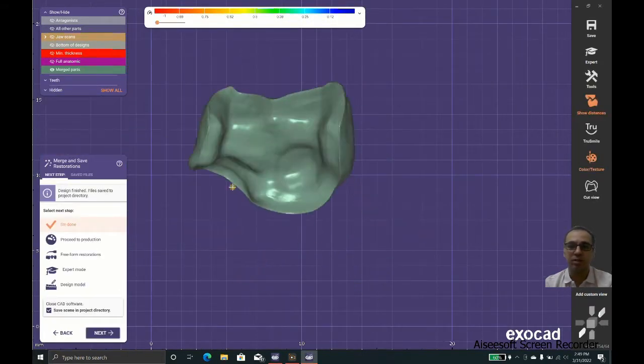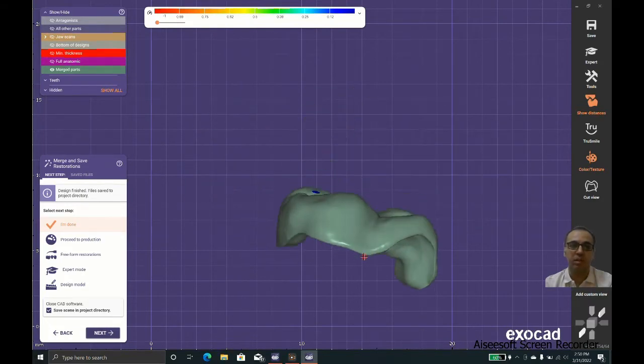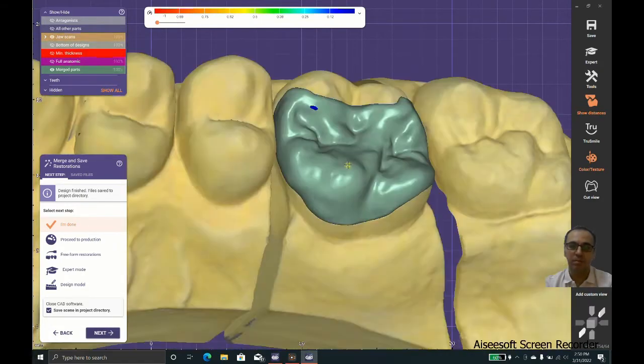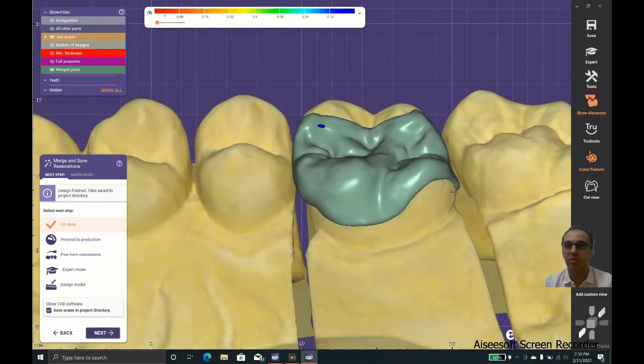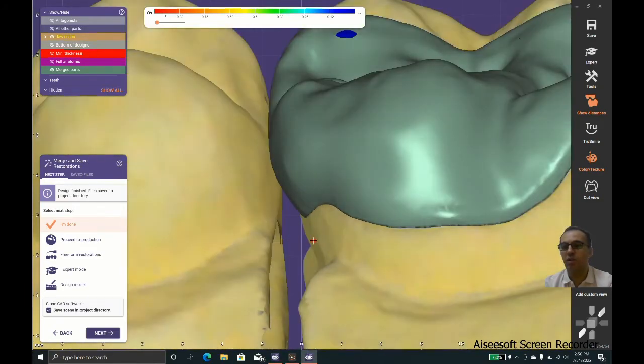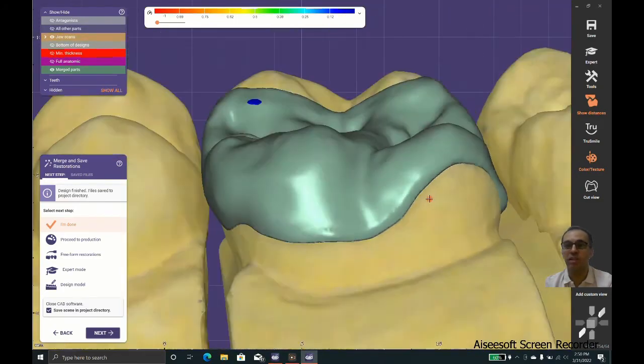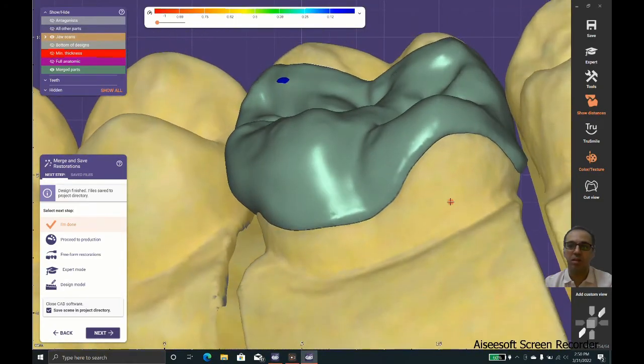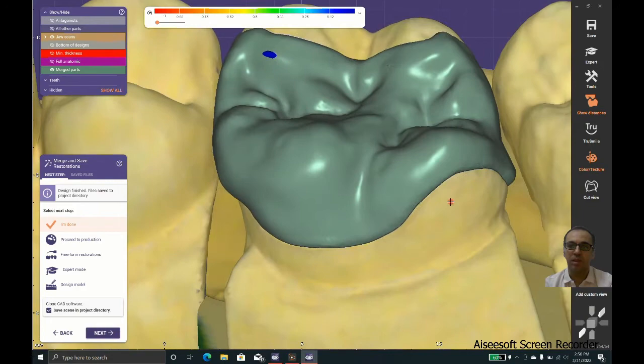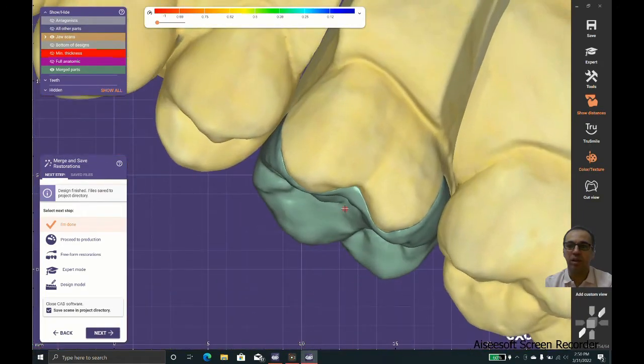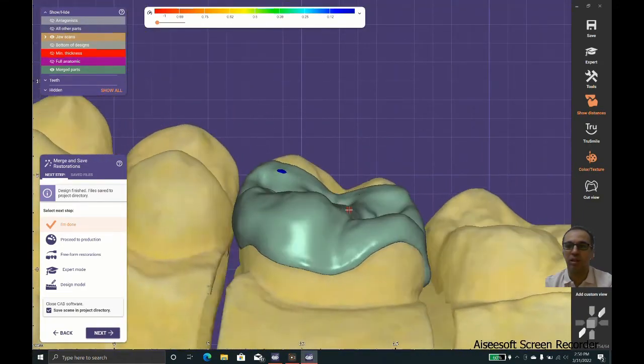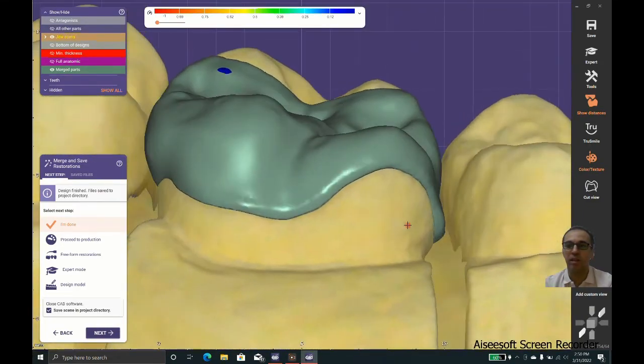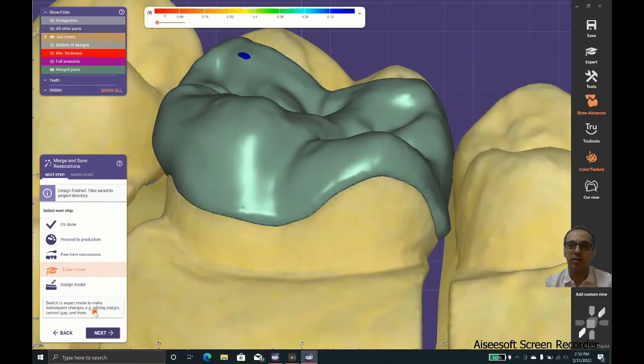I am going to expert mode to show you how we should correct this problem. As you can see, that part is not completely cleanable and it results in early decay.